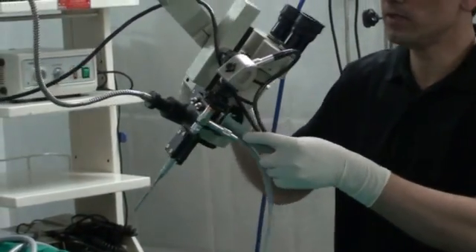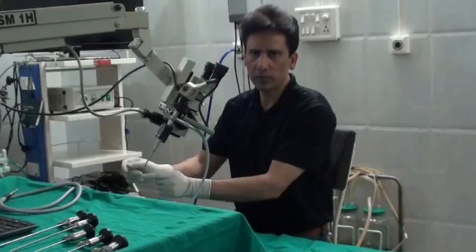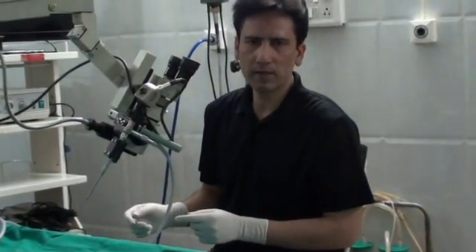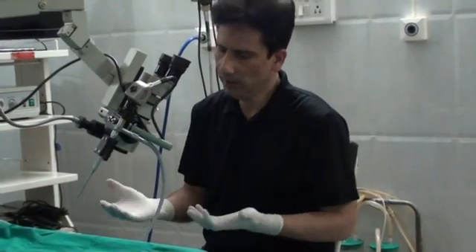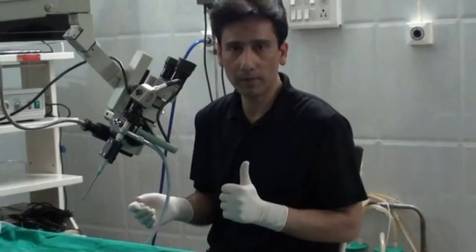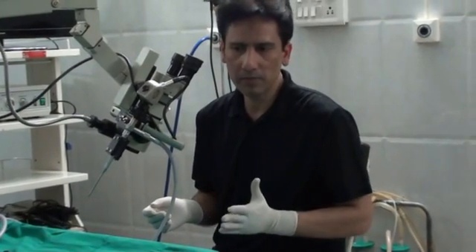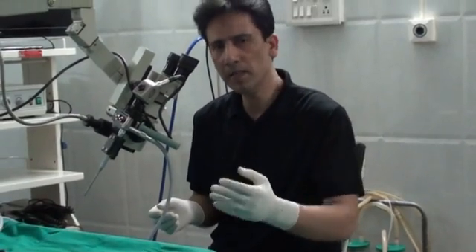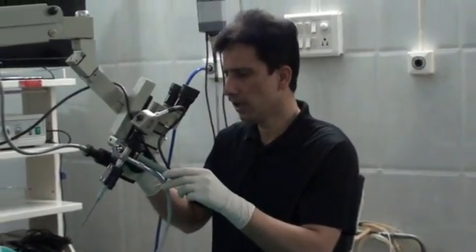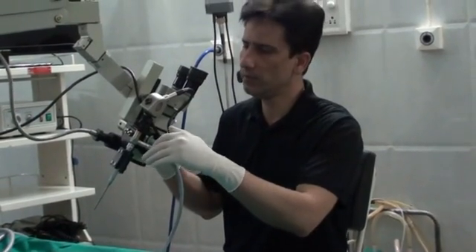You are getting both of your hands free to work. In my series of endoscopic mastoid explorations — you can watch the videos on YouTube — I have got both hands free, and that is the reason you are able to do more precise work. You don't lose time. I had finished one of my mastoids in 26 minutes. I have got recordings — you can watch YouTube for that.